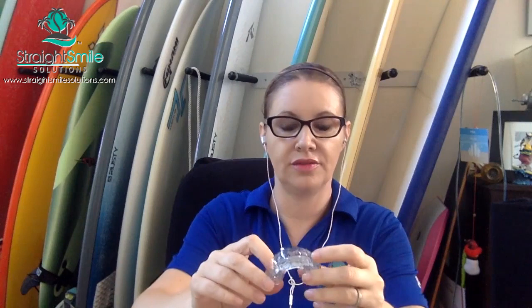You want to get those cases done early — you don't want to struggle with last-minute little twists, bends, or refinements. There's been a solution for ages and that's the positioner. I think most general dentists have no idea what a positioner is. They have both custom and semi-custom options, which is cool because they're not stock. This is what they look like. I can tell you ten other things they could be used for besides their FDA 510K use as a positioner.